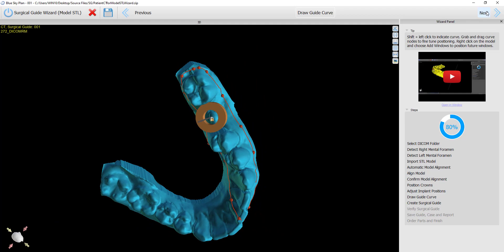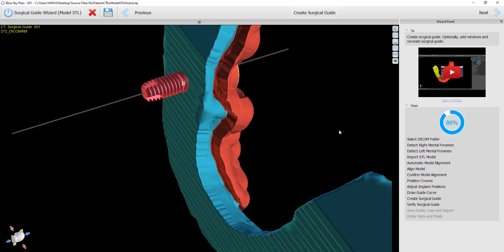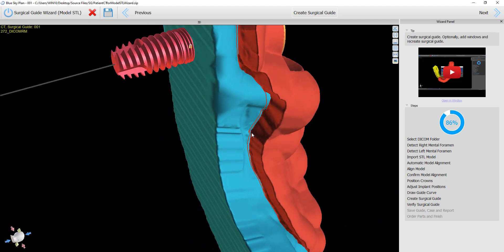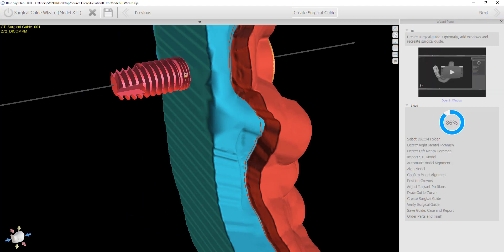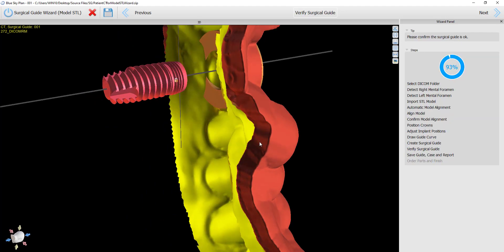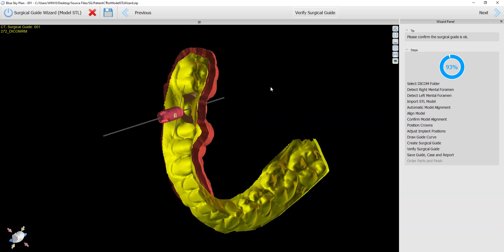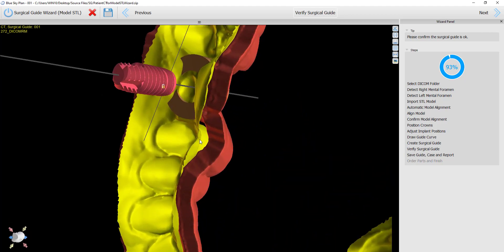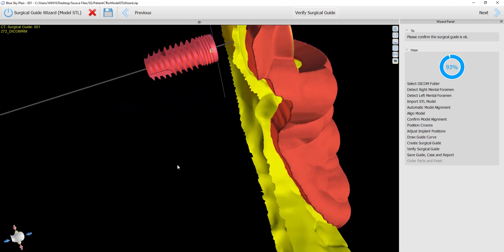We now proceed to draw the surgical guide curve, and then, as usual, click on the next button. We can now verify the surgical guide on the model that has the undercuts removed, and we can see the surgical guide has been designed according to the curve and has the undercuts correctly removed. When we click on the next button, we can now verify the surgical guide based on the original model. Here we could approve the complete surgical guide, and again we can notice how the undercuts have been removed, creating the space between the model and the surgical guide where the undercut has been removed.